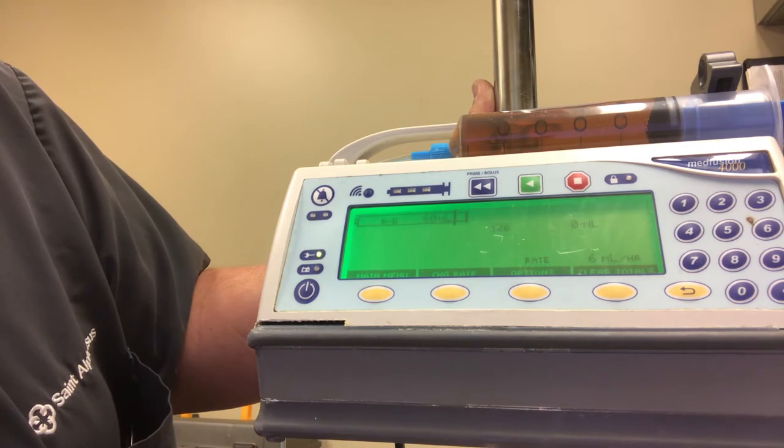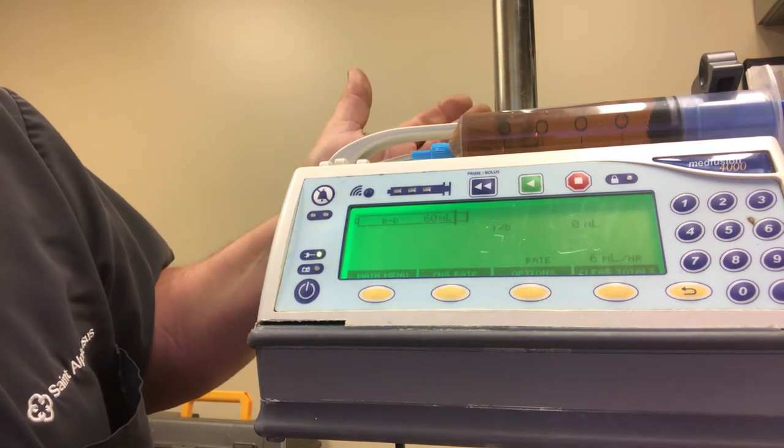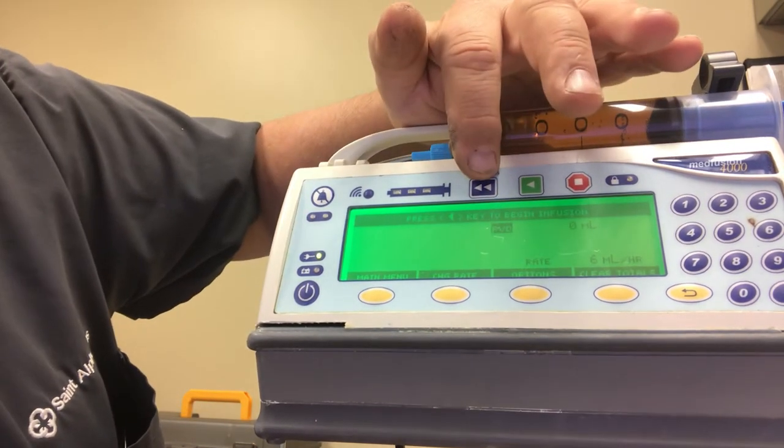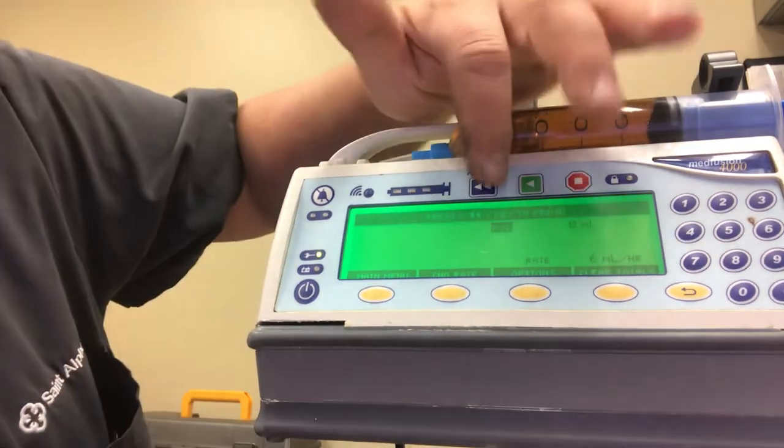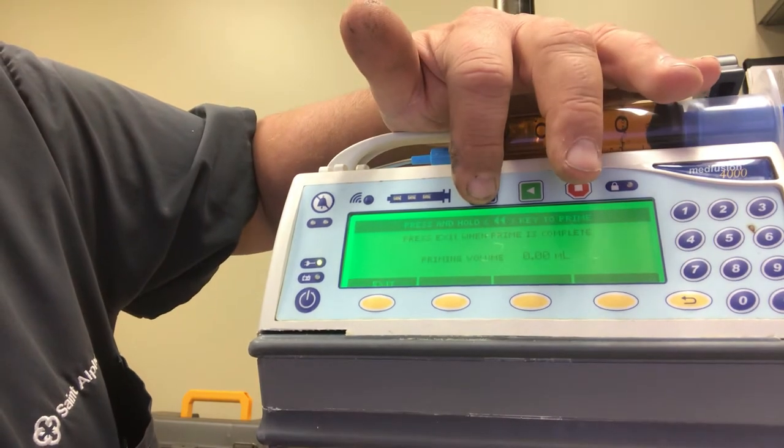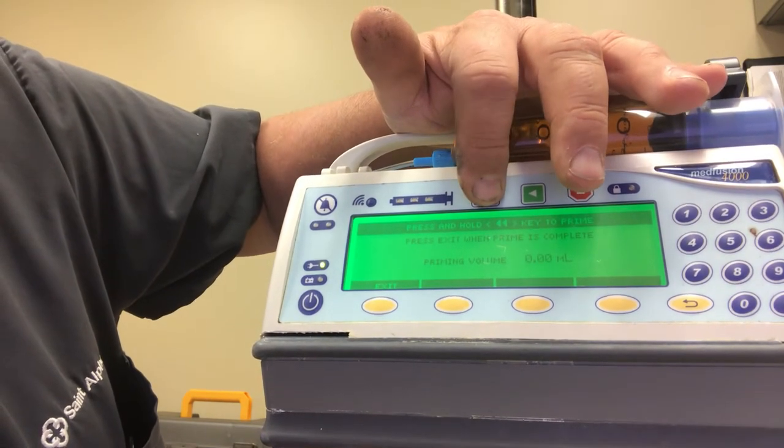Now it's going to ask me to prime, we do that by pressing this, it's about four mils and you'll hear it kind of start running the fluid through it. Press again.